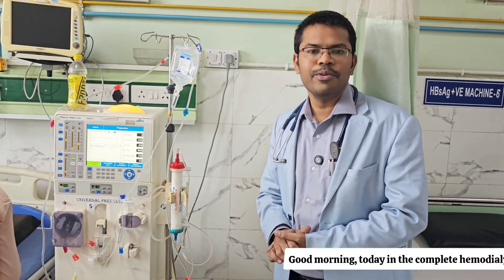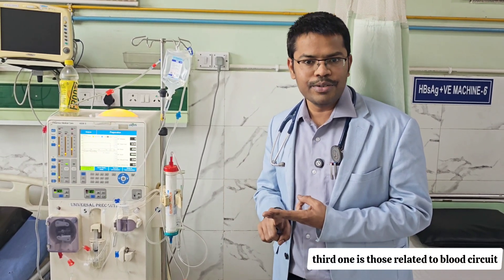Good morning. Today in the complete hemodialysis series, yet another important topic: alarms in the hemodialysis machine. To understand it better, we will divide into four parts: general alarms, patient vital-related alarms, those related to the blood circuit, and those related to the dialysate circuit.